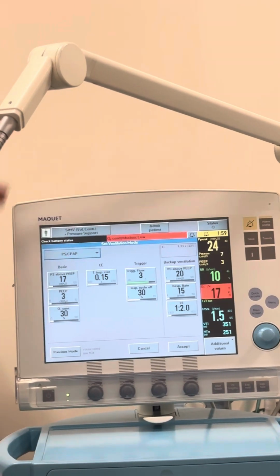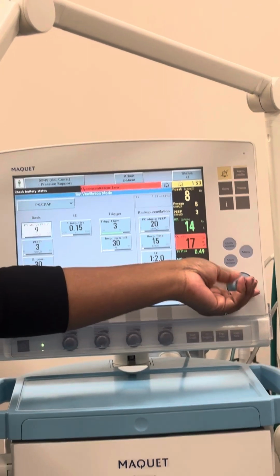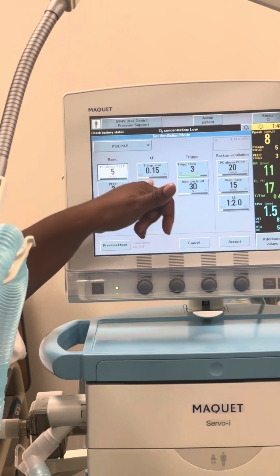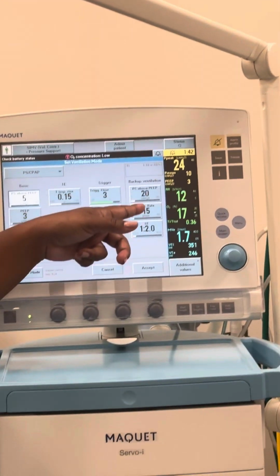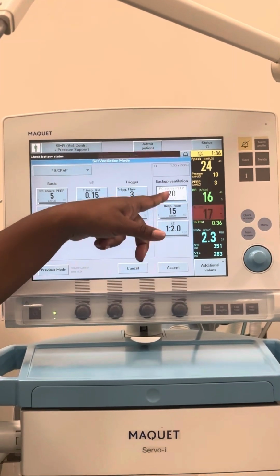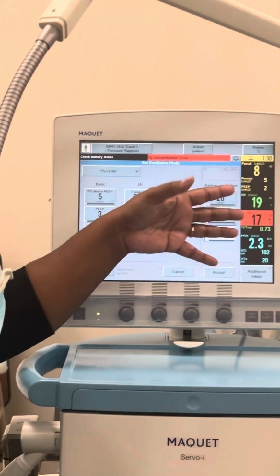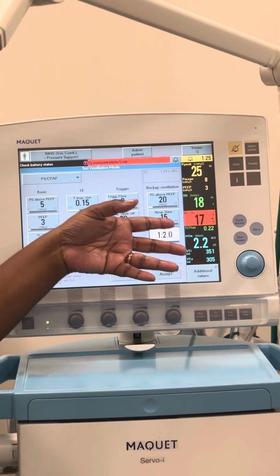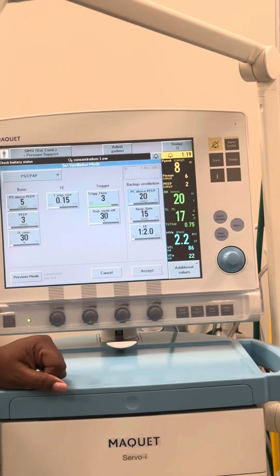So pressure support CPAP. So again, you've got your pressure support above PEEP, so I can, what did I end up with, 5 still? So I got 3 of PEEP, your FiO2. Don't worry about your percentages and your triggers at 3. So this is a backup ventilation. So you can do like a backup. So pressure, if they go into pressure control, this one's actually doing a pressure control backup above PEEP, a respiratory rate, and an IE ratio. We don't worry about that unless we want something different. So don't worry about your backup ventilation, but that's your backup apnea if you wanted to set it. You can set something different. So you can always change that to something else.